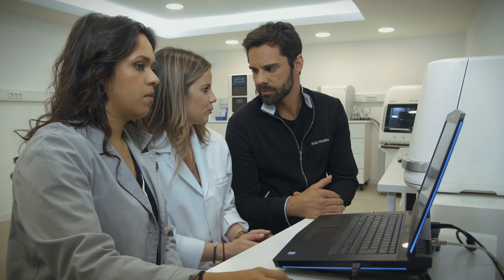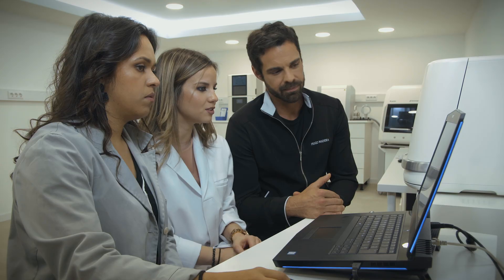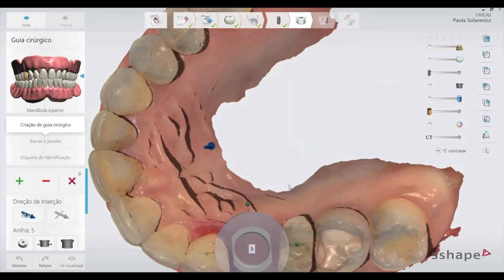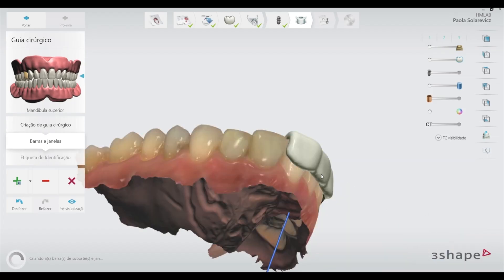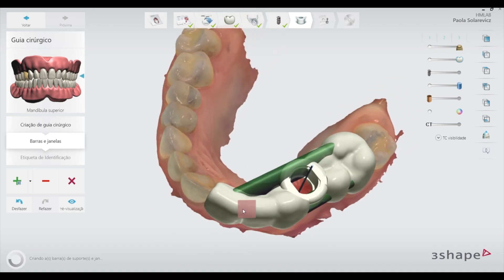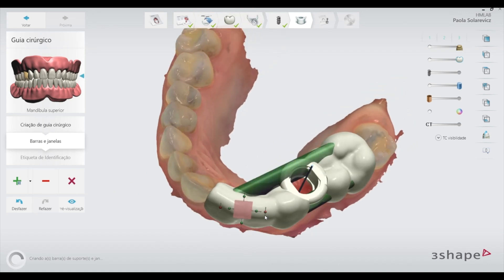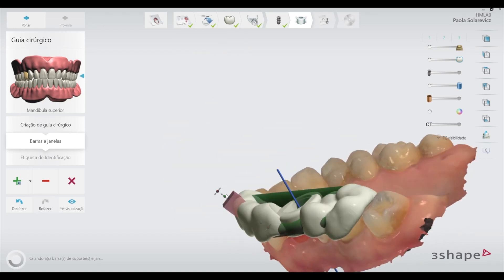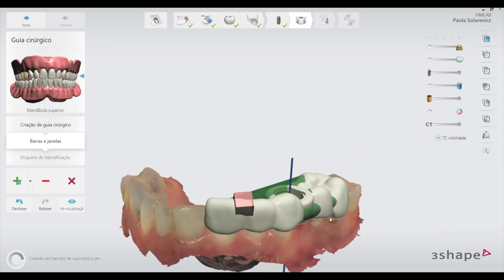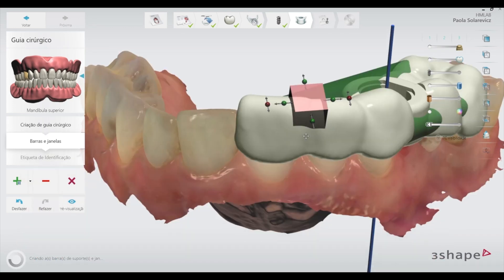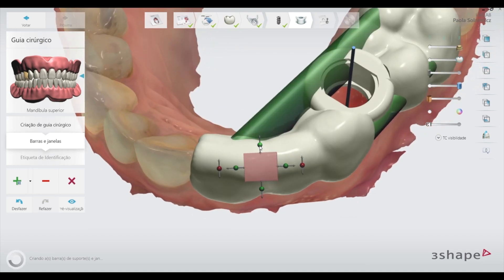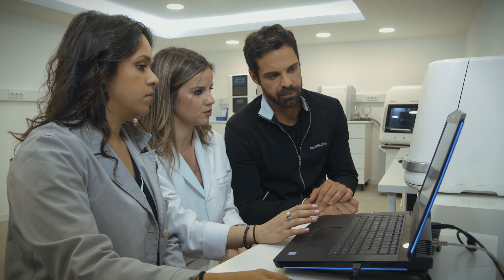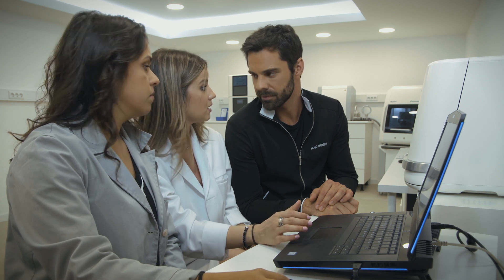When you have the implants already planned, you can go ahead with designing the surgical guide. As mentioned, we have three types of guide designs. In this case we'll use a teeth-supported guide. And because it's only one tooth, we can make a small, focused template. It's very important to have small windows to make sure the guide has a passive fit. And because it's tooth-supported, it is stable.